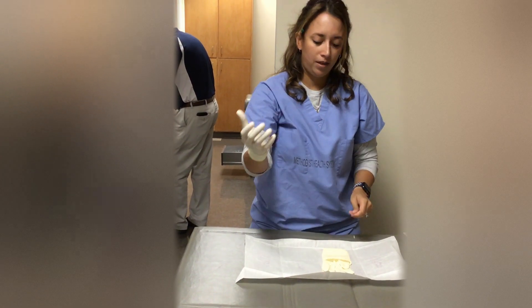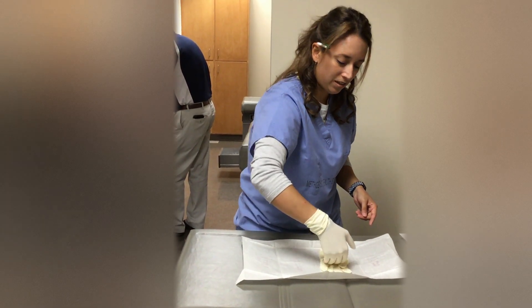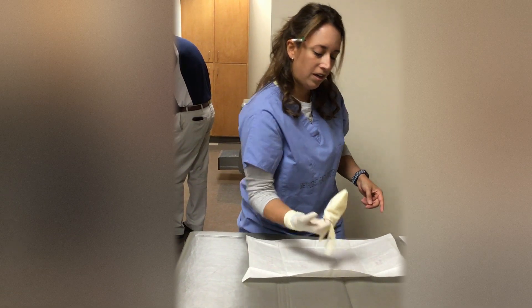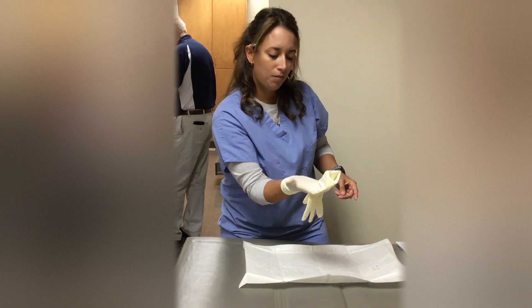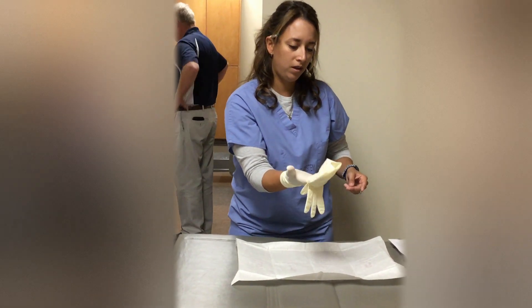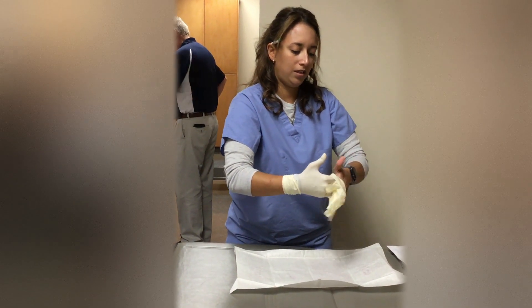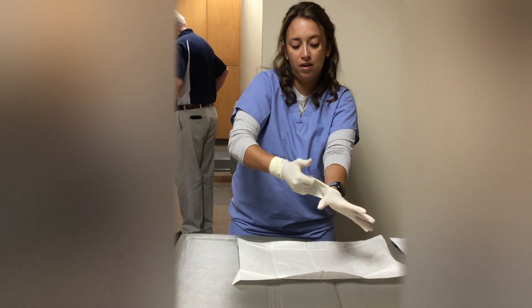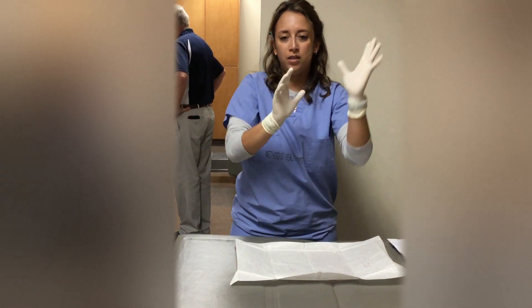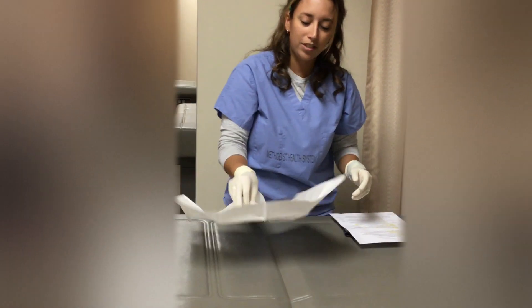I'm going to fix it, just like that. I just messed it up, but whatever. So then you stick this hand in, and I'm going to wiggle it a little bit until my finger hits the edge on the inside, making sure to keep this away from my body. I'm going to open up a little hole so that my hand can fit in, pulling away with my left hand and with my right hand as I stick my thumb in. I'm going to pull it around and then let it go. And then don't touch this — you can touch it from the inside.